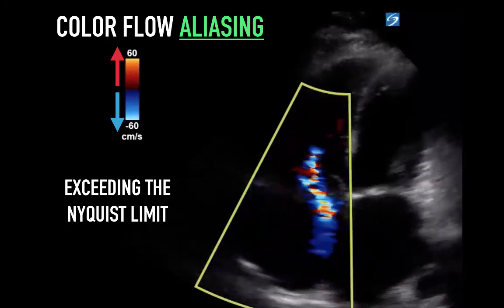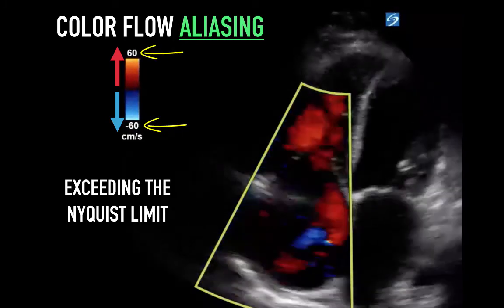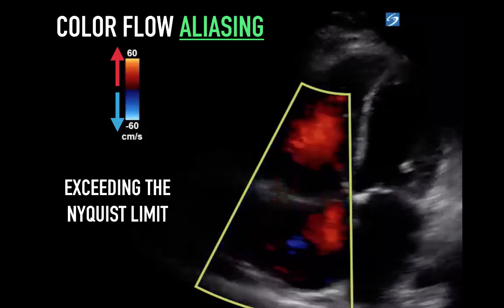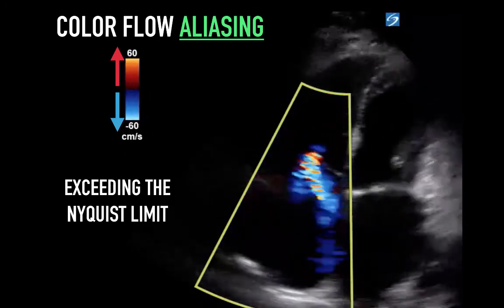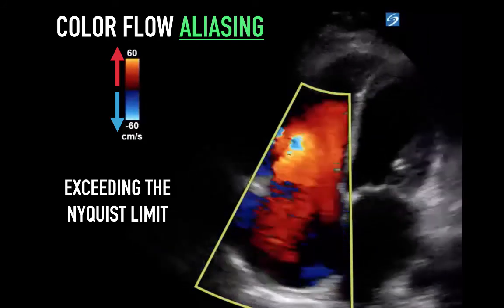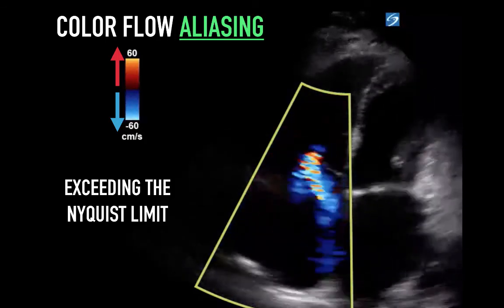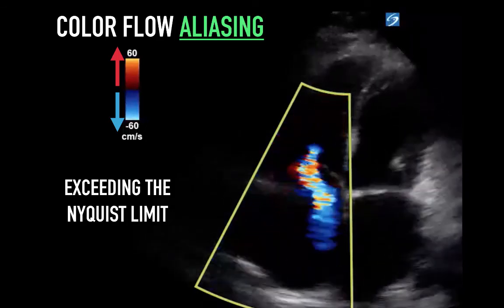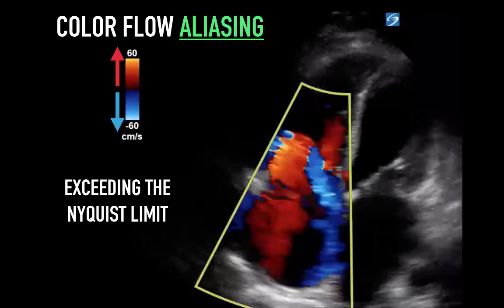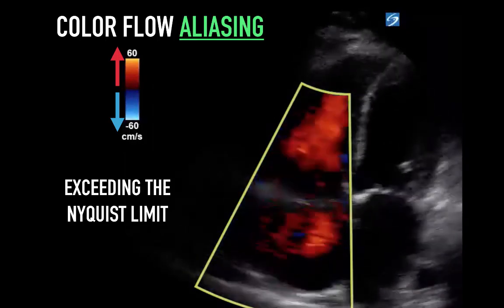An interesting phenomenon occurs if you exceed the velocities in either direction — called aliasing. The maximum velocity the scale can work between is referred to as the Nyquist limit. Once the velocity of blood flow in one direction exceeds the brightest red, the color instantaneously changes to the brightest blue, then gradually darkens. In an apical four-chamber view, normal diastolic flow is red towards the probe, but in systole a blue regurgitant jet — tricuspid regurgitation — is visible. In the center of the jet, color mixing creates a mosaic pattern because the jet exceeds the maximum velocity in the color scale, like looking at a propeller at a certain frequency where you can no longer recognize the direction it's spinning. This can help pick up areas of flow acceleration like stenosis and regurgitation where blood is pushed through a pinhole.